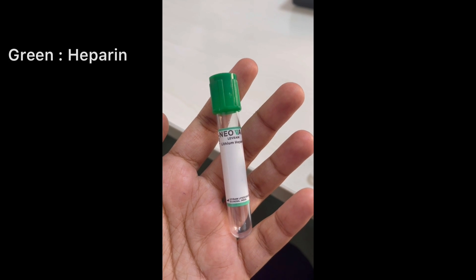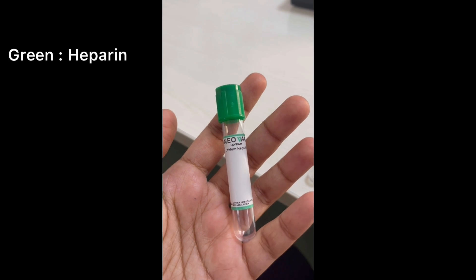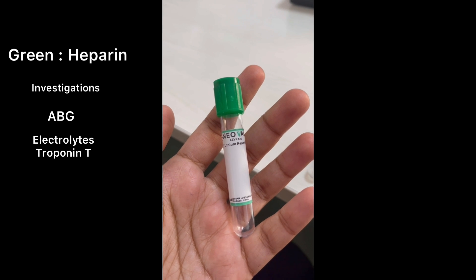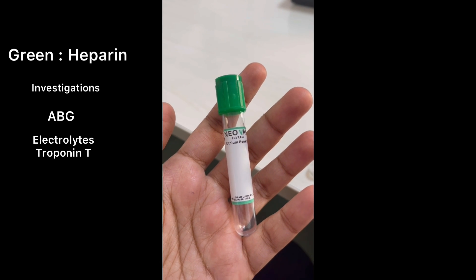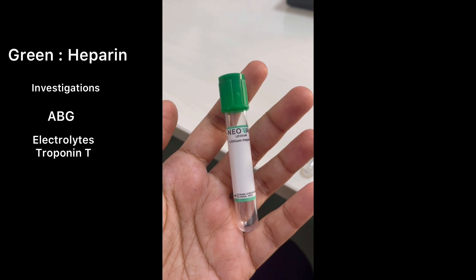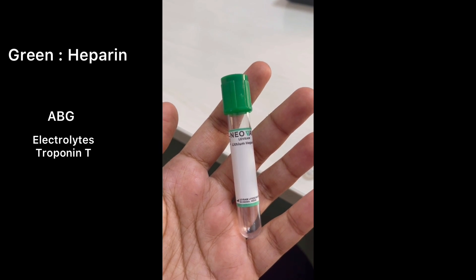This green tube contains heparin. Heparin-containing tubes are used for ABG analysis, estimation of serum electrolytes, and for Troponin T, which is a cardiac marker.